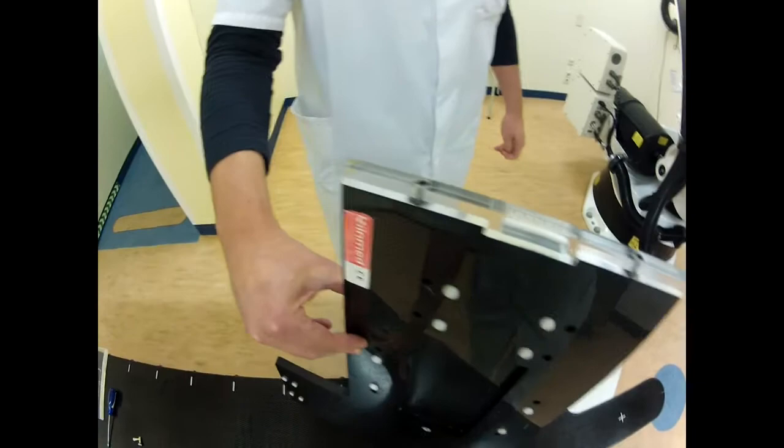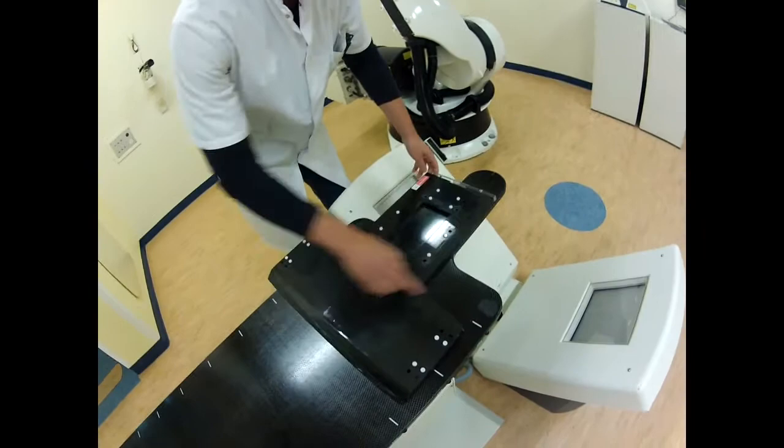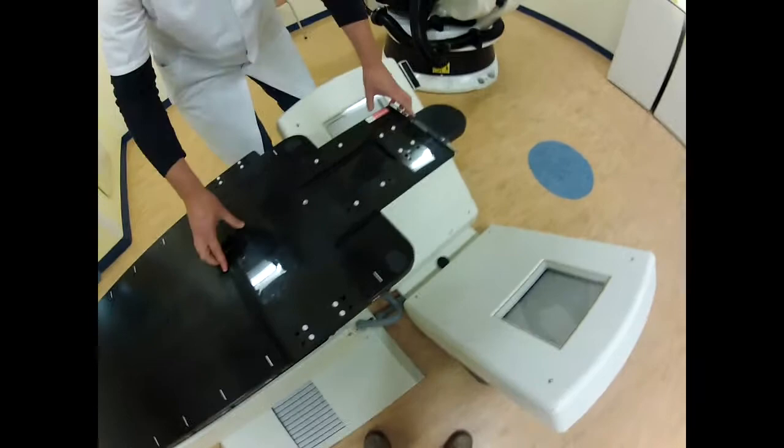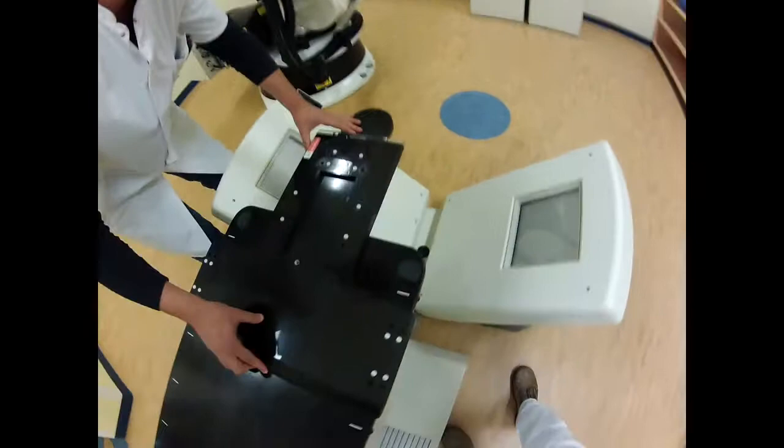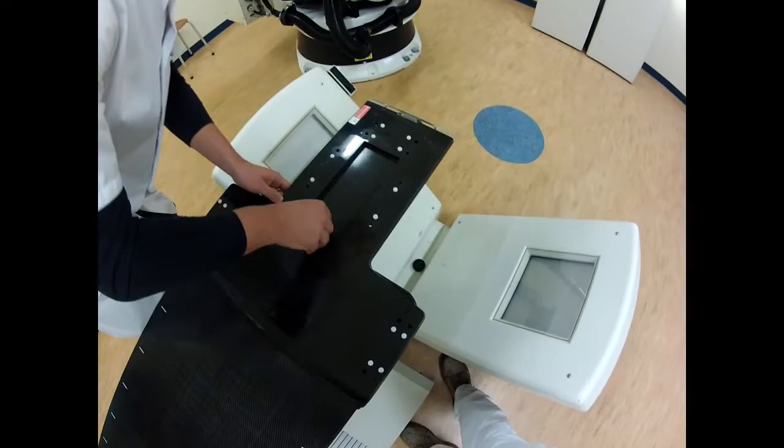We used to just attach this plate with velcro, I think they call it. In Holland we call it clitter bond. Don't forget it. Same idea here, just put it on here and screw it with the same screws we used for the three-point mask.